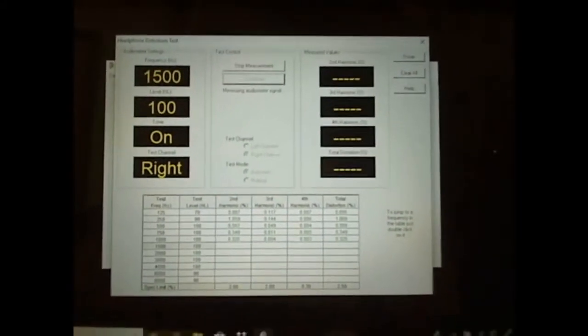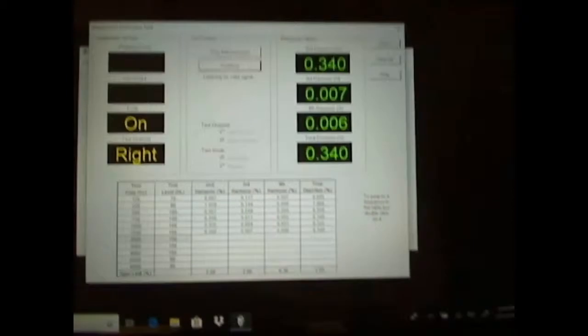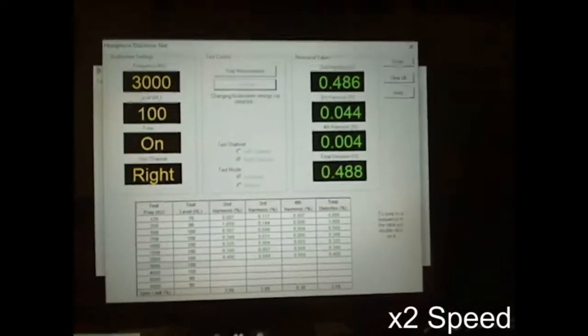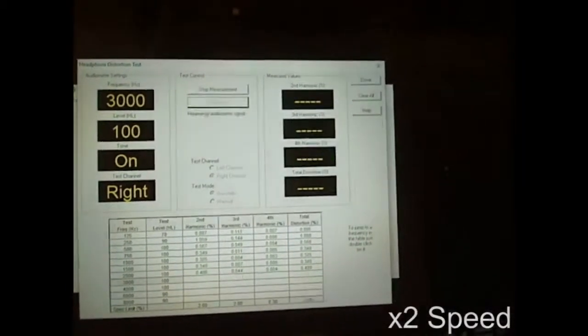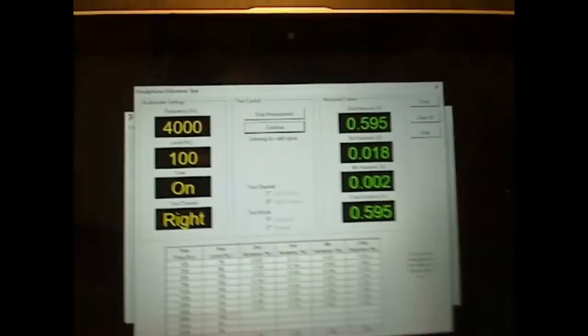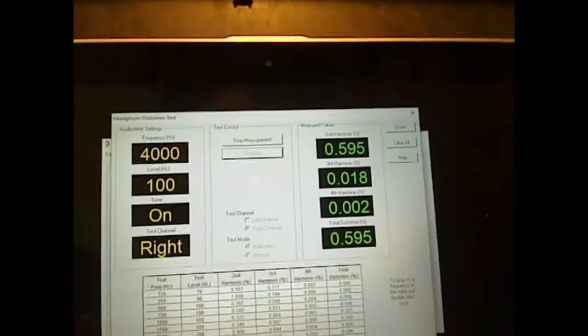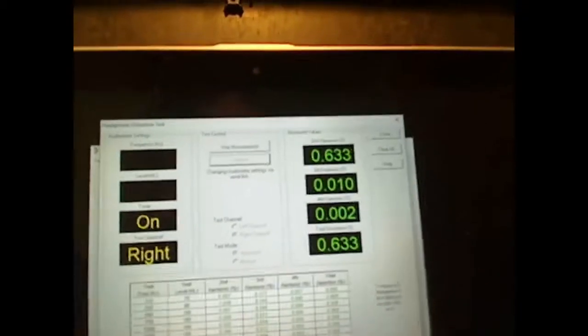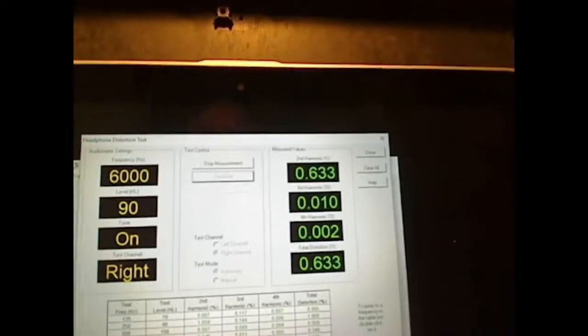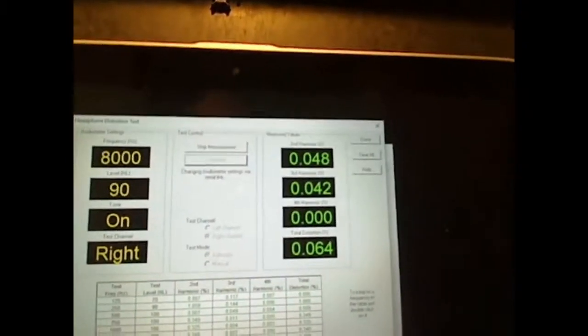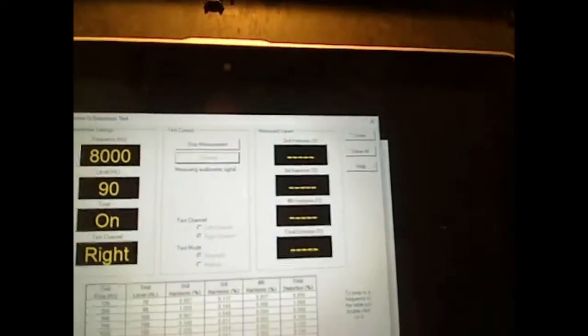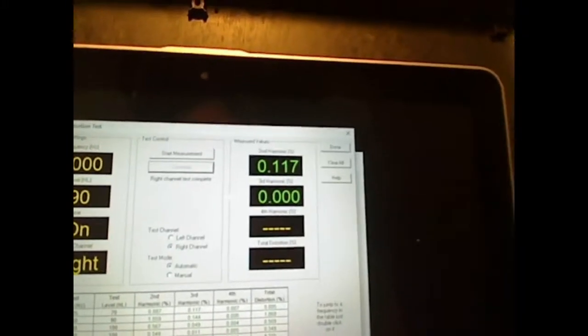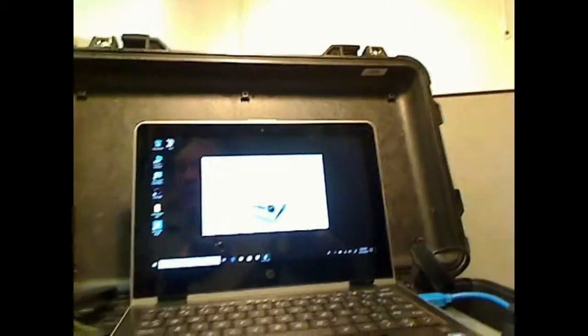I guess I could have speeded this up a little bit. Well, we'll just set it and maybe I can edit it out. If you notice, we've actually changed it. The software has changed that. The ACS system is taking control of that audiometer. And now you see it just changed the output level from 100 dB to 90. These are all manufacturer's specifications for calibration. Now we're going to see something here. Look at that. It's telling me to put on the left headphone.